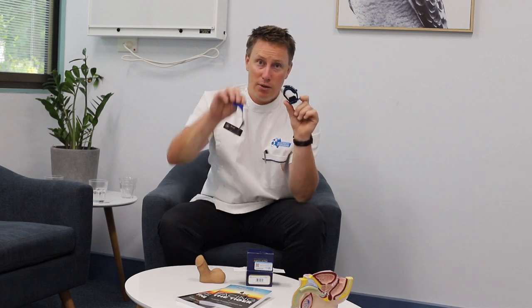So that's the Pacey Cuff. It comes in different sizes. There's a little chart on the website, menshealthdownunder.com.au, that will help you figure out what size you need. Otherwise pop into your Men's Health Down Under pharmacy or pharmacist and they'll be able to measure you up, because it's important you get the right size.